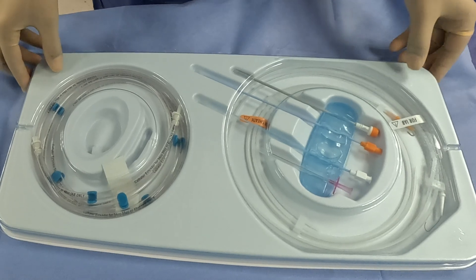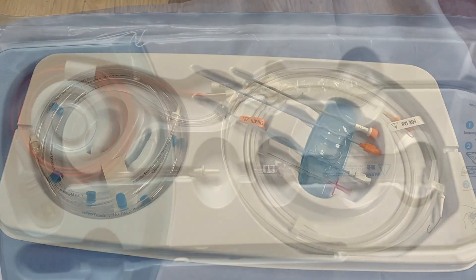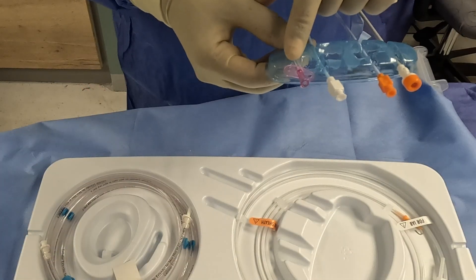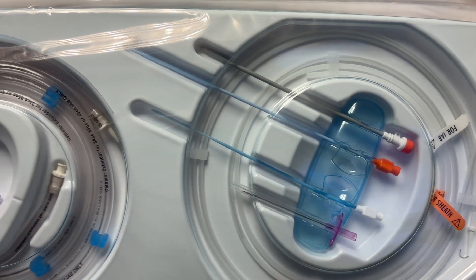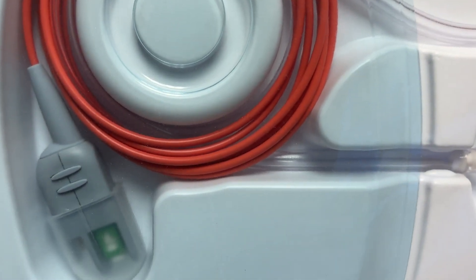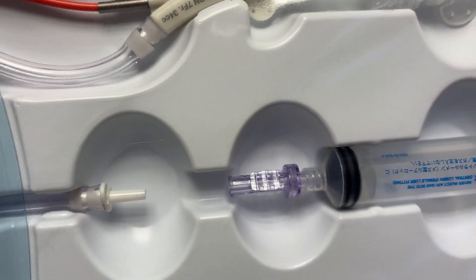The Balloon Catheter Insertion Kit consists of two packs: the insertion kit and the balloon catheter kit. The insertion kit consists of an insertion needle, dilator, sheath, sheath dilator, guide wires for the sheath, a guide wire for the balloon catheter, and a gas line. The balloon catheter kit consists of a Fiber-Optic balloon catheter, a one-way valve, and a syringe.